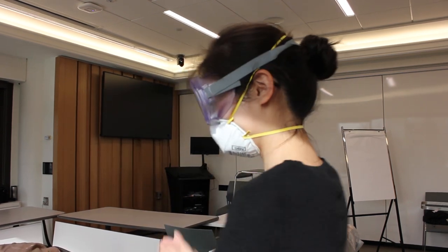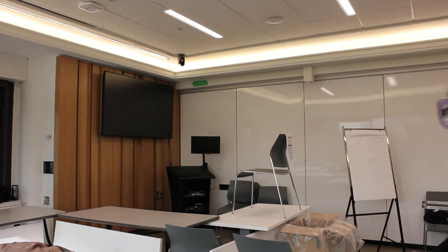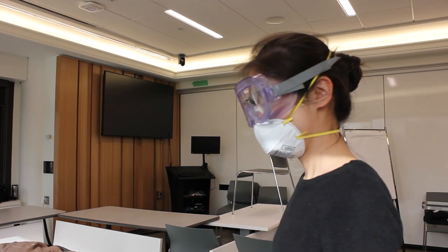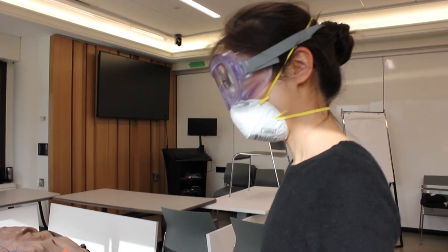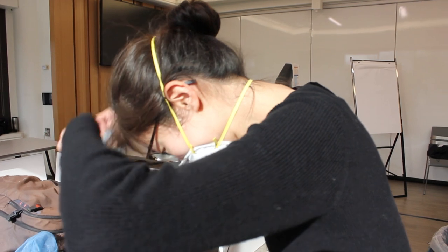Okay, so wash your hands — you can just do an accelerated hand wash. Not the real technique, but for the sake of demonstration. Now Nancy, if you can take off your goggles. Just finding those straps can be a little difficult.